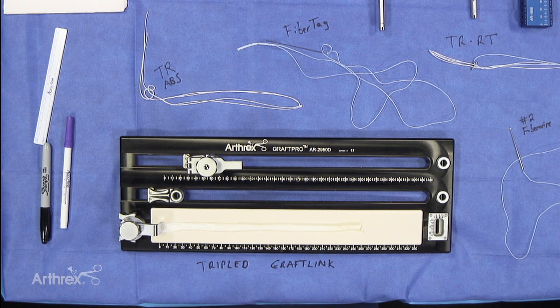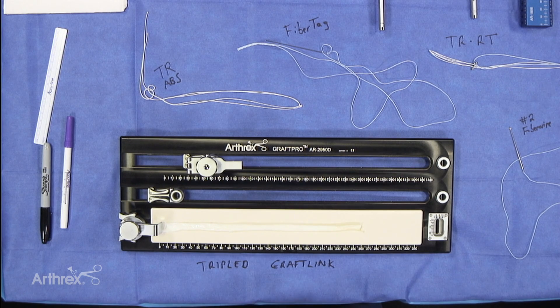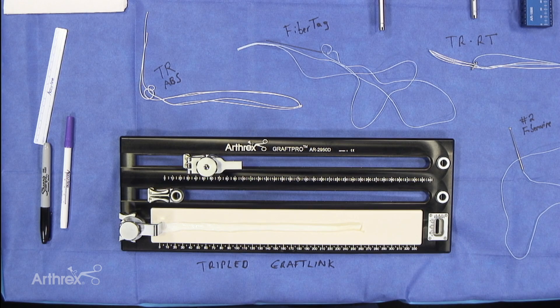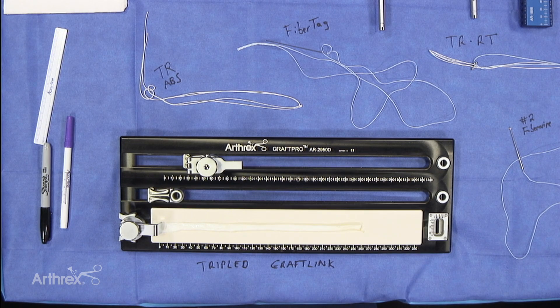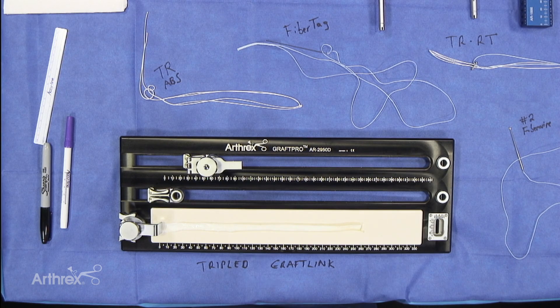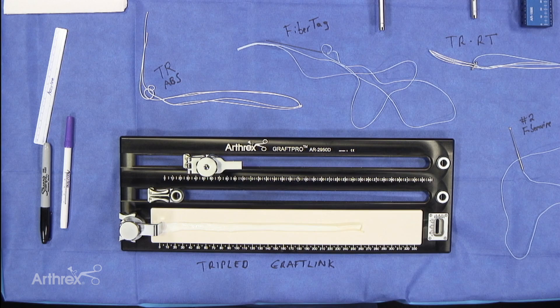We typically use Peroneus longus, but I agree they are hard to come by. And although we've been extremely pleased clinically with the outcomes of our graft link PCL reconstructions, there is the problem with the graft's availability being very long.